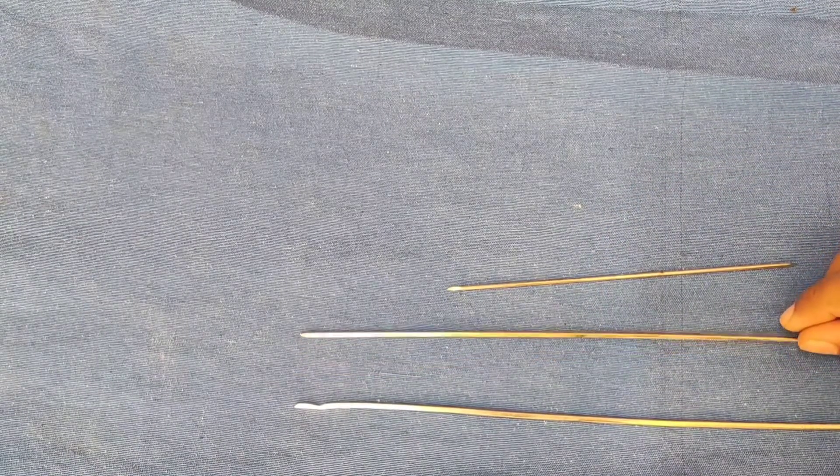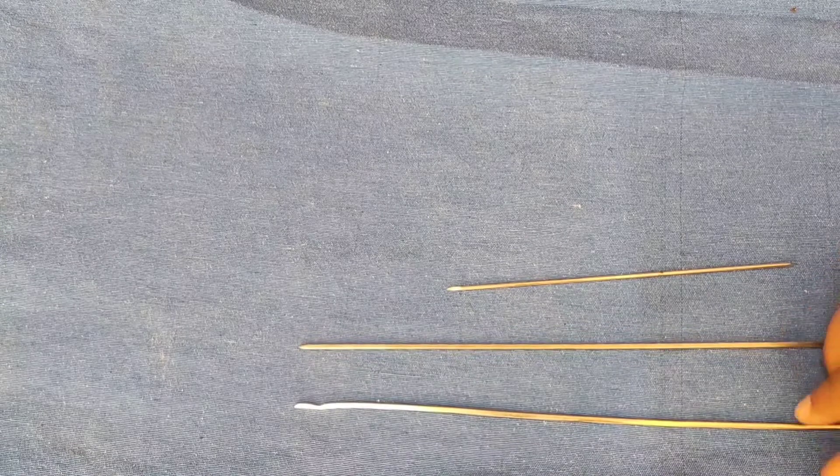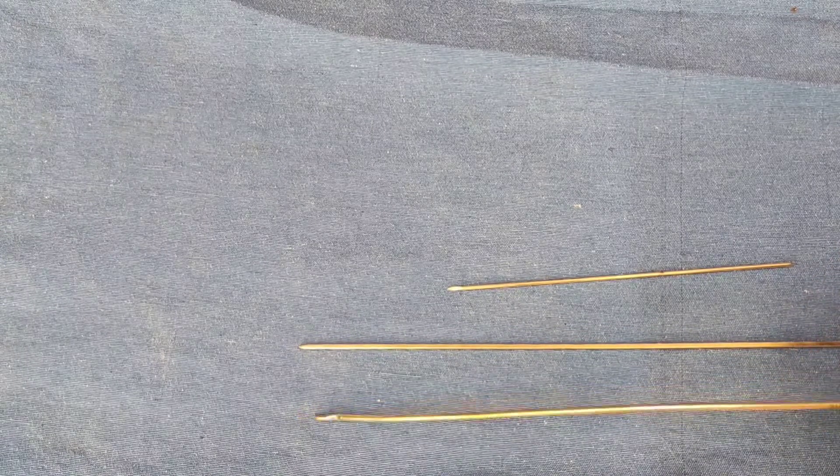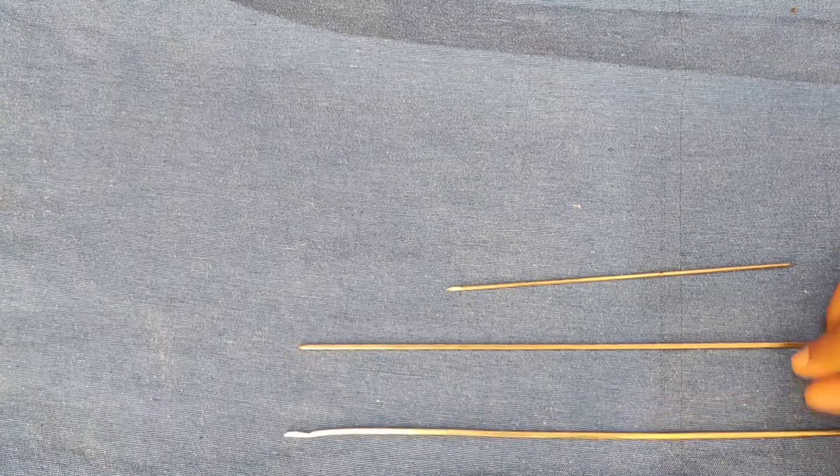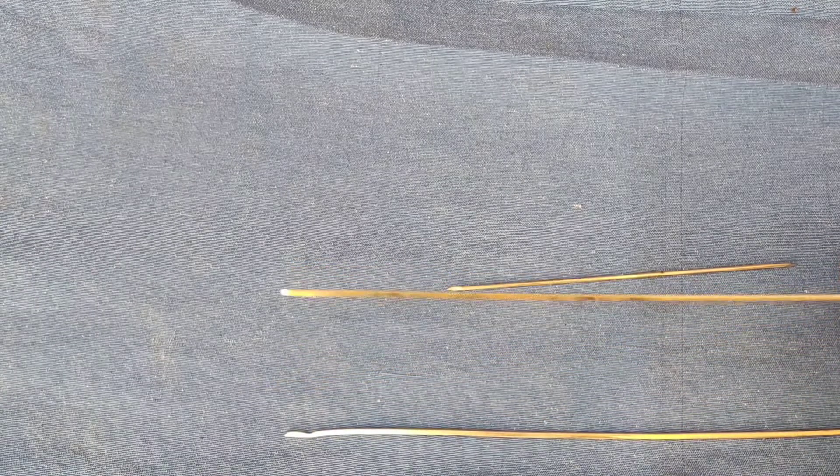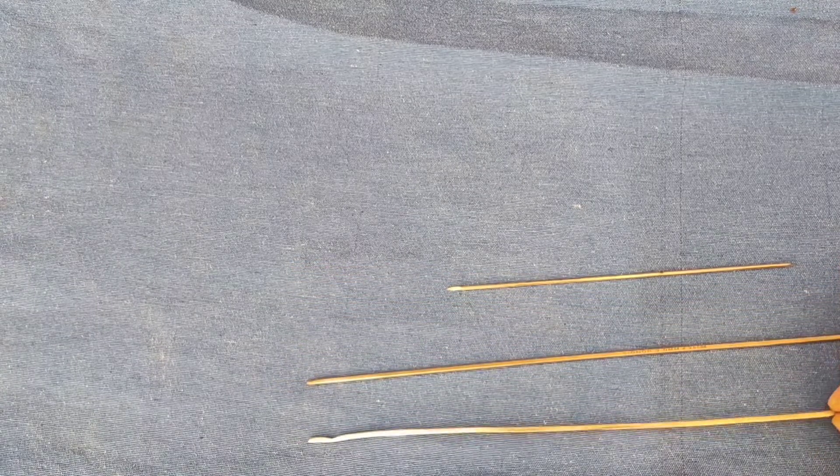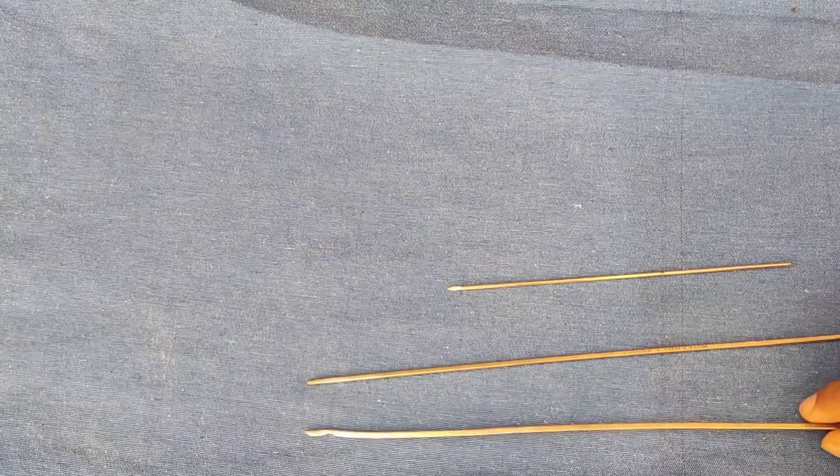Disadvantages of the nail: there is less rotational stability and there is no locking mechanism. Commonly available sizes range from 1.5 to 6.5 mm diameter of various lengths.